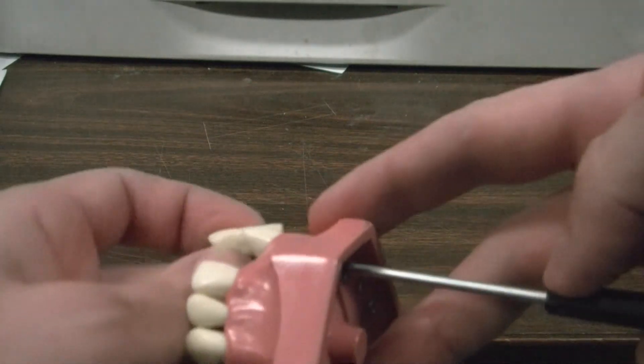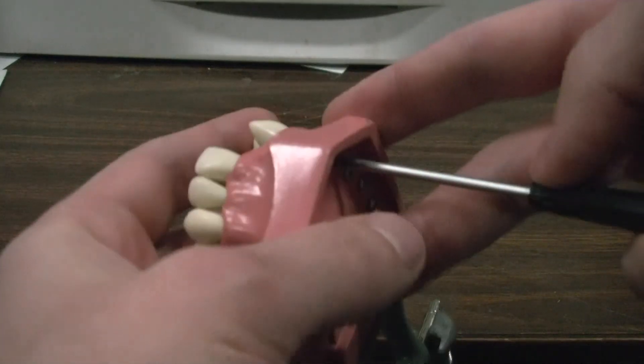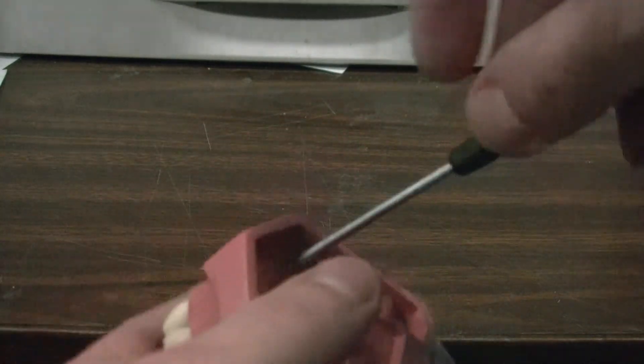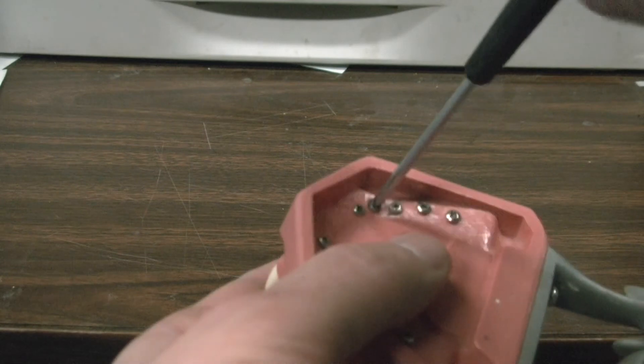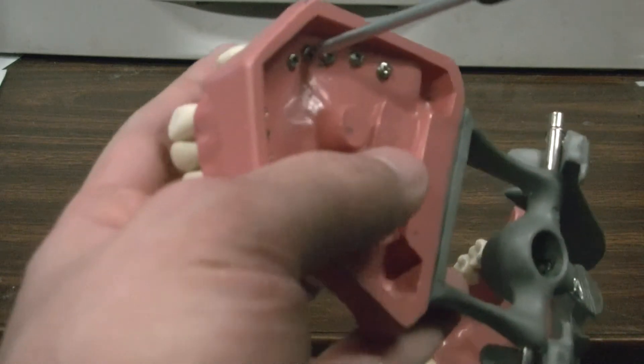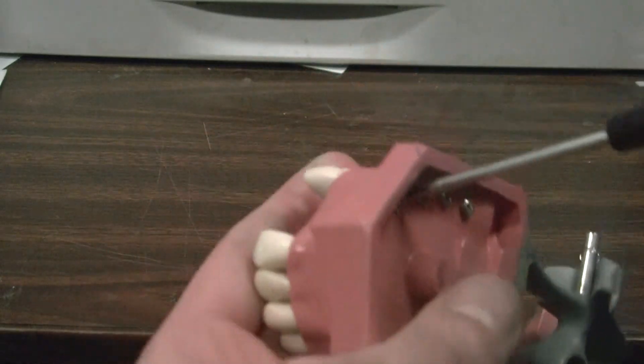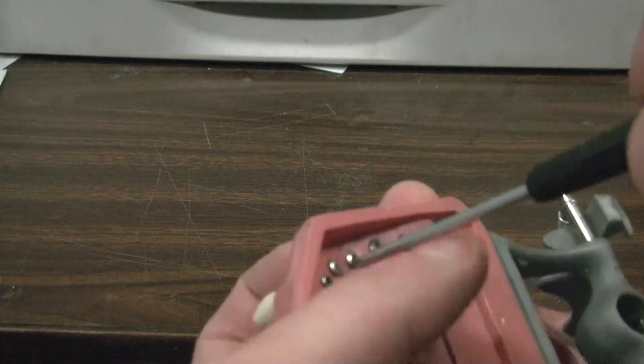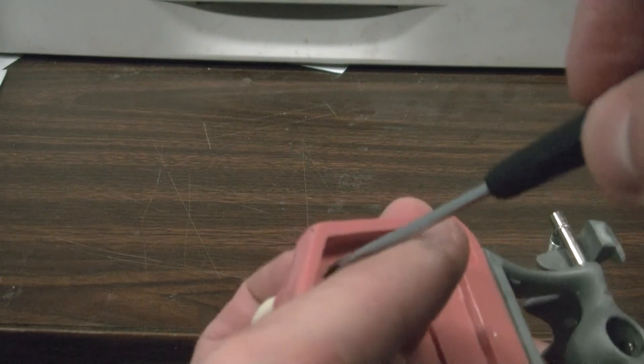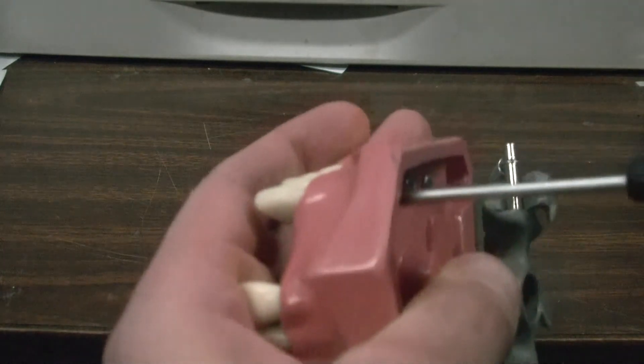I am holding the screw with the screwdriver, and you put the tooth in. It's not in there, and I am just screwing and letting the tooth get pulled in by this screw. Like that. And that's it.